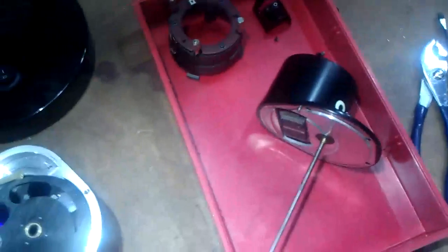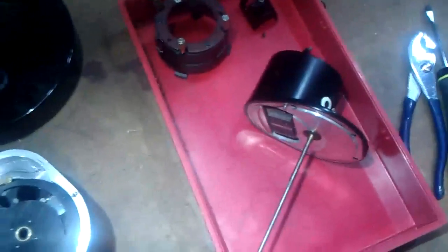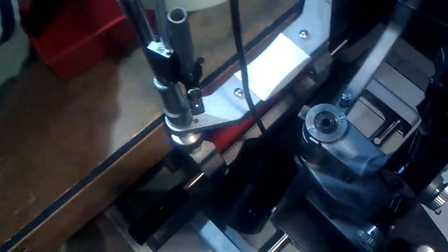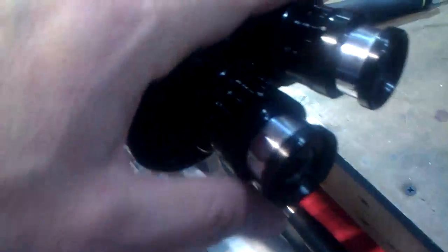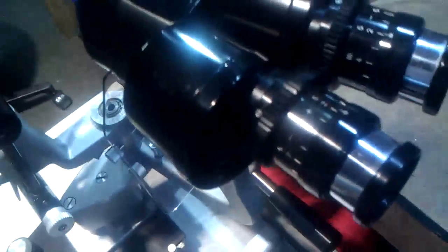We're going to fix that—it's a little bit tight—and we've got a couple parts here taken apart. So we'll take care of that and give this a good overall cleaning, clean the optics, take some of these apart, clean those up also, and we'll have a real nice used unit here that can be put back into service.